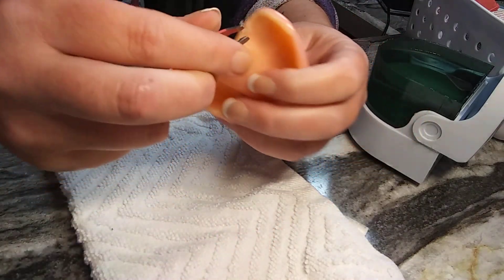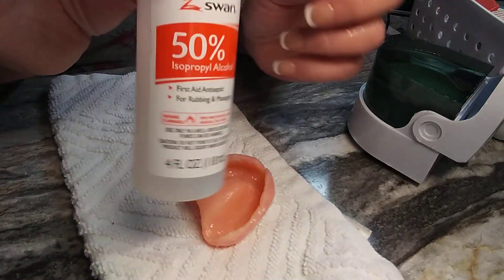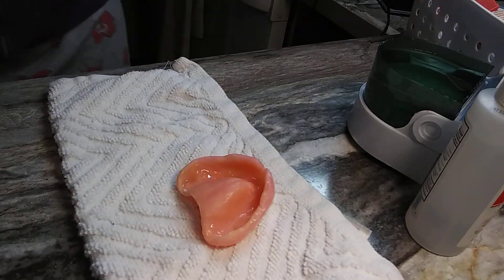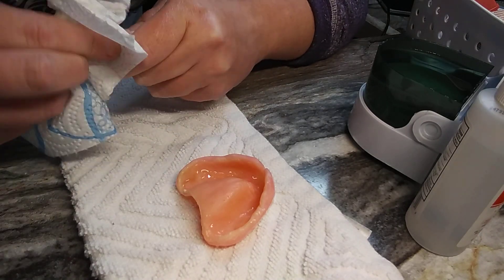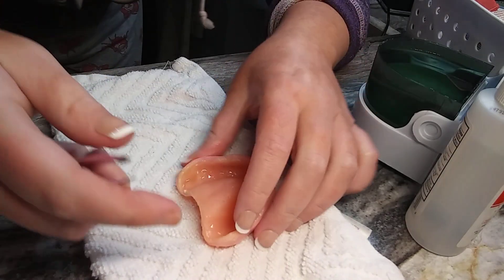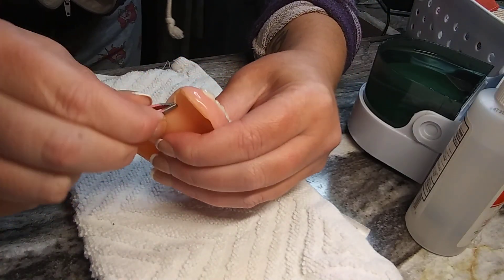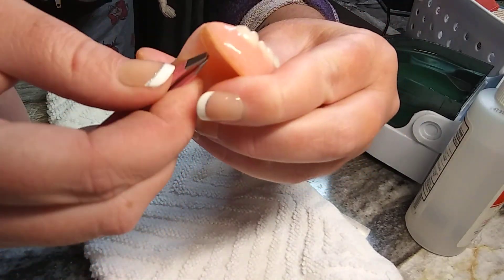What you would normally do is take your tweezers and clean them with alcohol — you want everything clean. Now everybody's always asking me how to get their reline out. I hate doing this, it's annoying and a pain, but it needs to be done. I did put more hot water in there because I'll probably have to soak it more, but what you want to do is work out the edges.